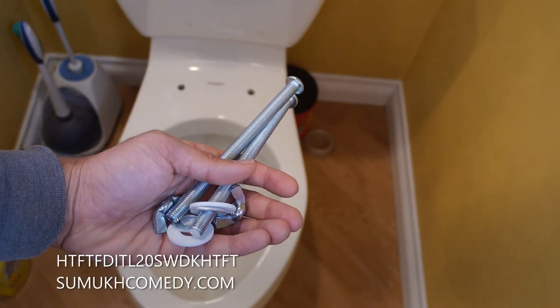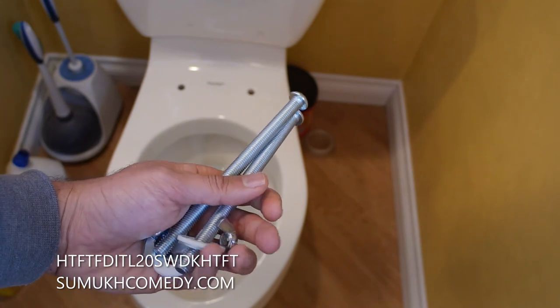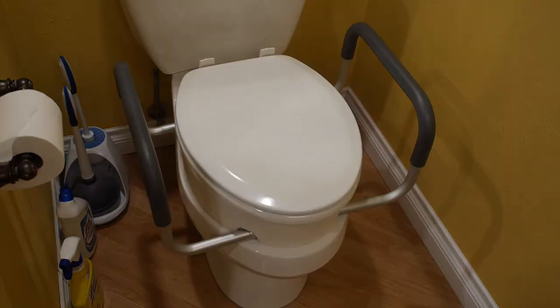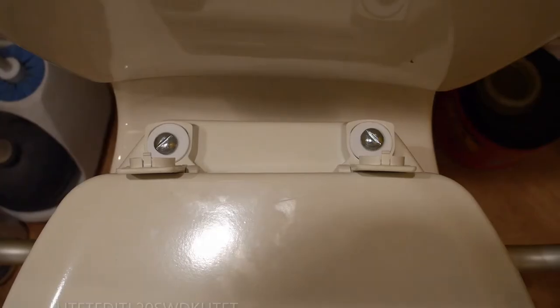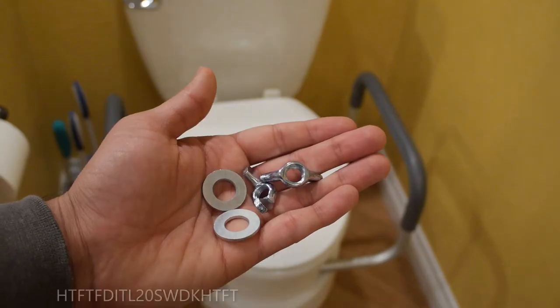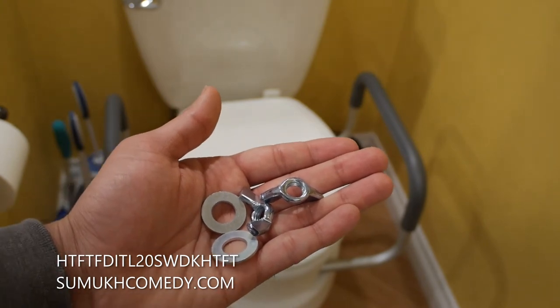Now that we've cleaned up the toilet, the toilet seat riser is ready to be put onto the toilet. The toilet seat riser provides you with new screws, washers, and wing nuts. Go ahead and place the seat riser aligned onto the holes. I was so disgusted by the old toilet seat that I went ahead and bought a new one, and I've aligned that on top of the seat riser in line with the holes as well. Put the white washer provided through the screws, and put each screw for each hole of the toilet seat.